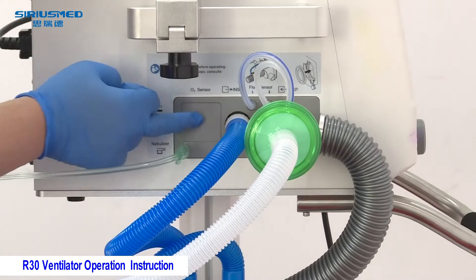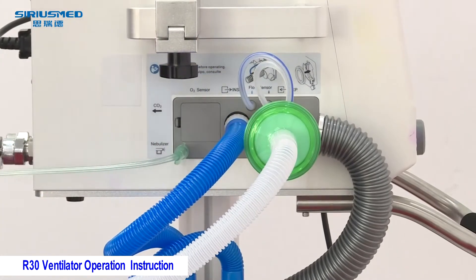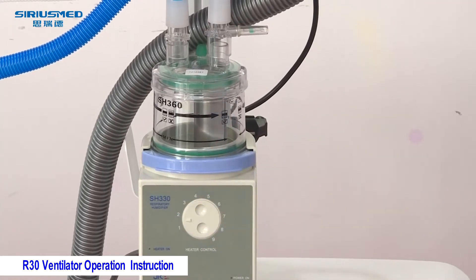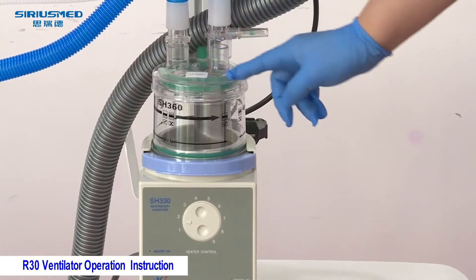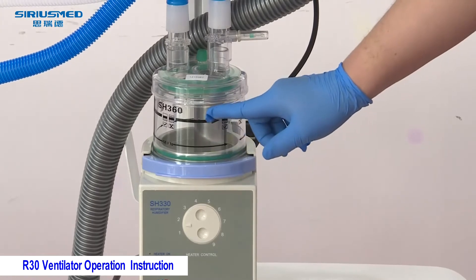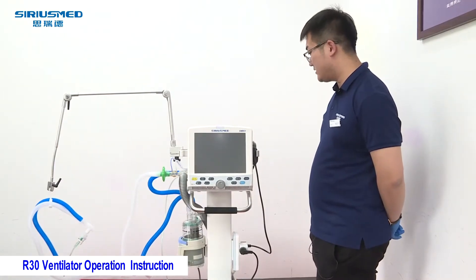This shows the nebulizer, oxygen sensor, inspiration part, and expiration part, as well as the switch for the humidifier and the temperature adjustment. Pay attention: we need to put the distilled water in first, and then we can connect the cable and adjust the temperature. There is a minimum and maximum level for the distilled water.